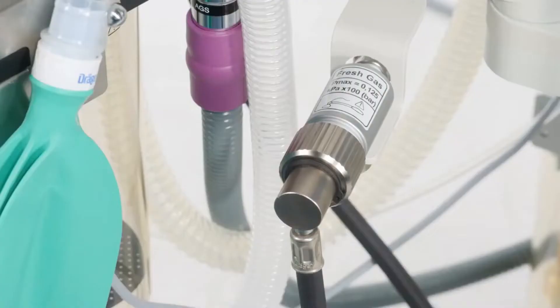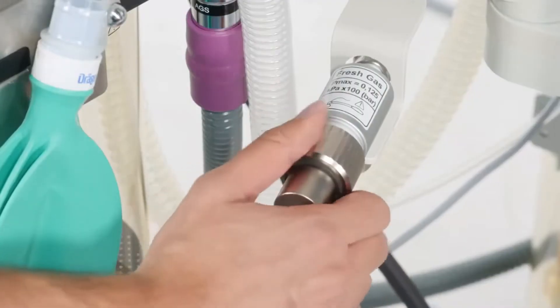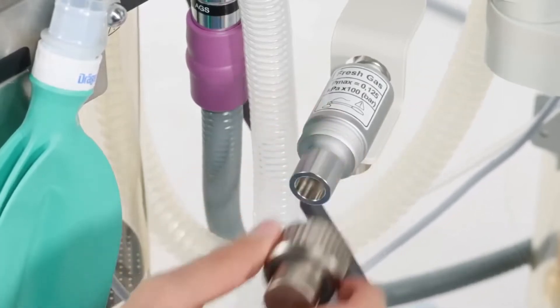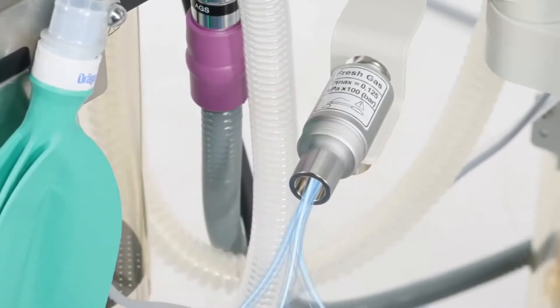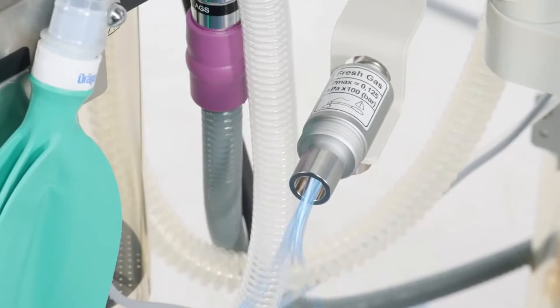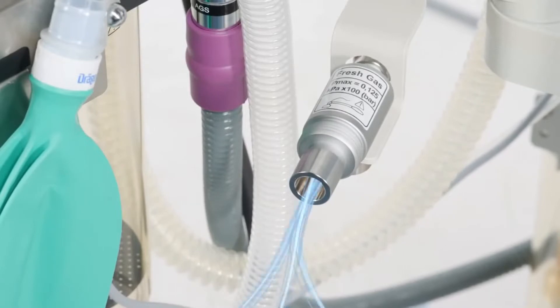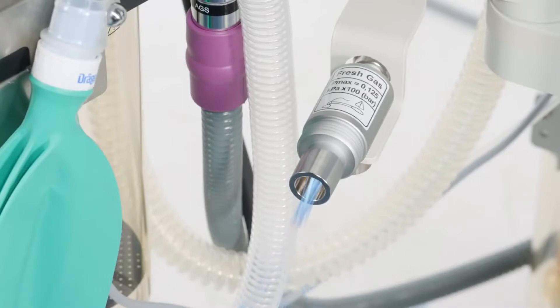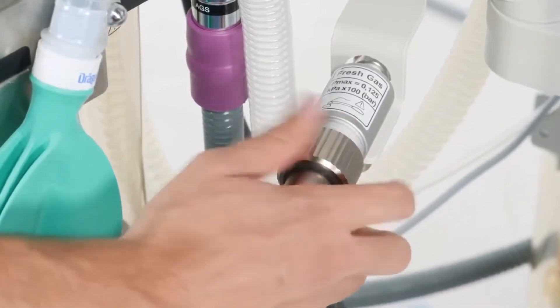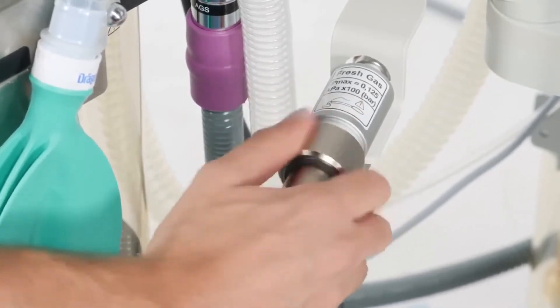Changing the direction of the fresh gas flow on a Fabius device fitted with an ACGO without switch can be done by unscrewing the short fresh gas hose from the external fresh gas outlet. All fresh gas will now flow to the external fresh gas outlet. To redirect the flow to the COSY, simply reconnect the short fresh gas hose.